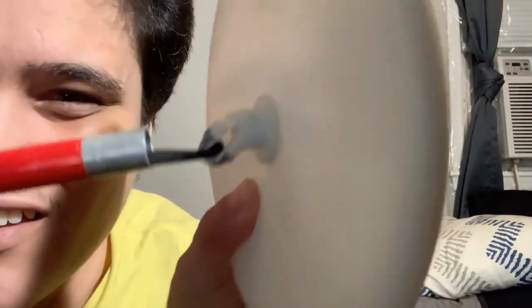I'm going to first show you how canes are hooked onto their tips — how they pretty much stay together, because they are removable. The first way, and the way I'm most familiar with, I'll show you with the disc. If you can see, there is a hook attached — normally the hook is inside.